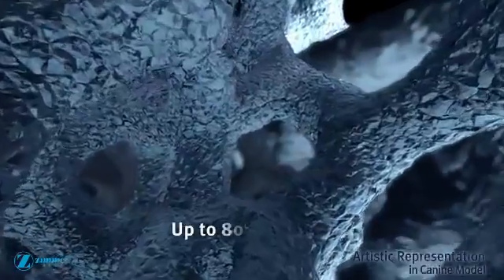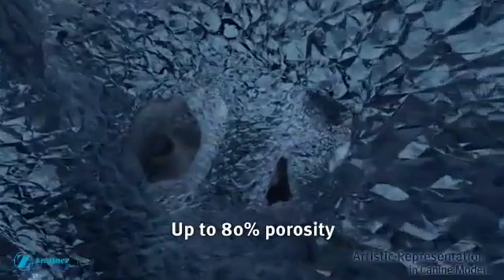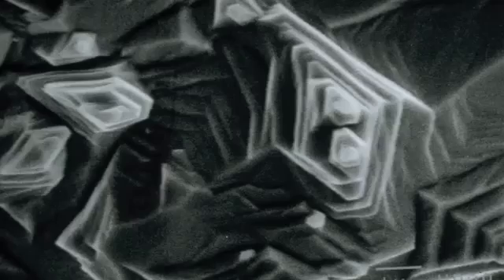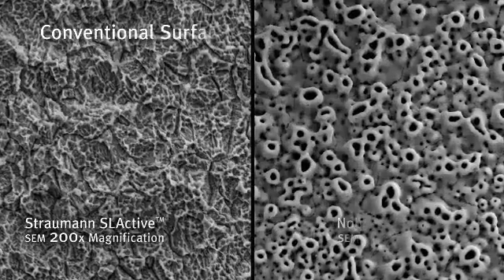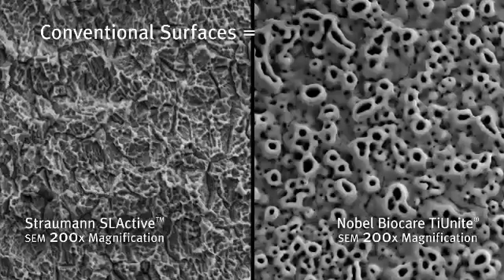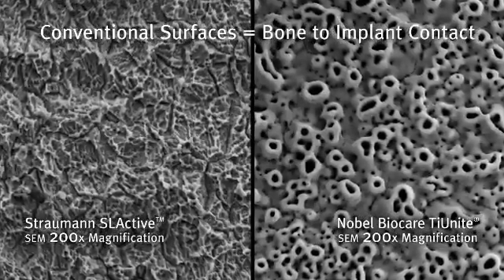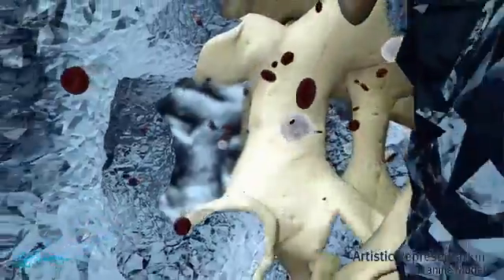A glimpse inside trabecular metal material reveals its uniform three-dimensional cellular architecture with up to 80% porosity. The entire surface area of trabecular metal material exhibits a textured topography. Conventional textured or coated implant surfaces achieve bone-to-implant contact; however, trabecular metal material is unique with its consistent open network of pores.